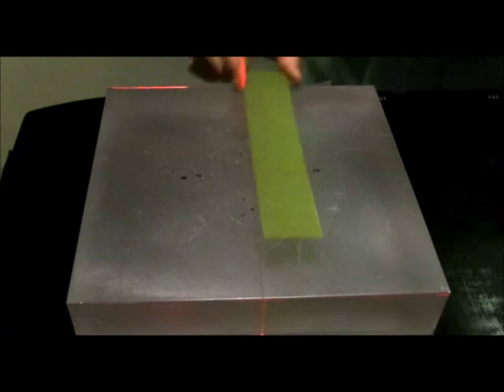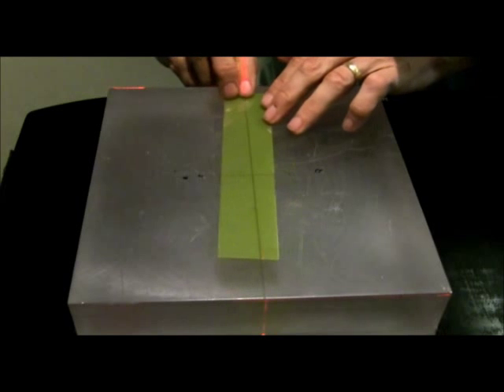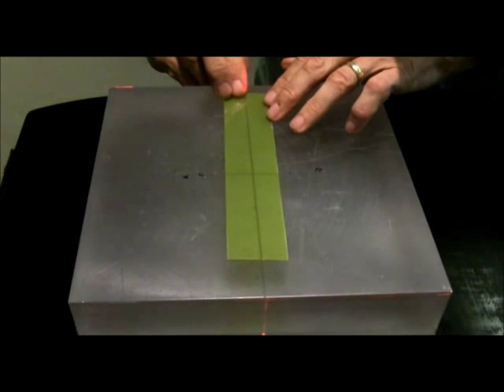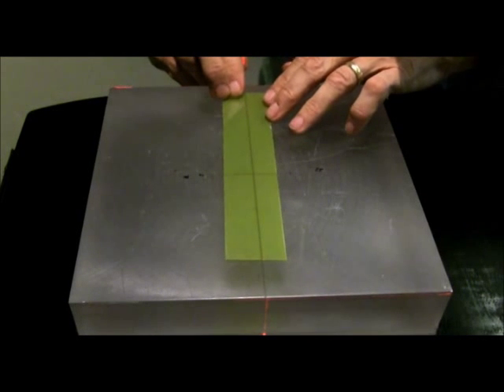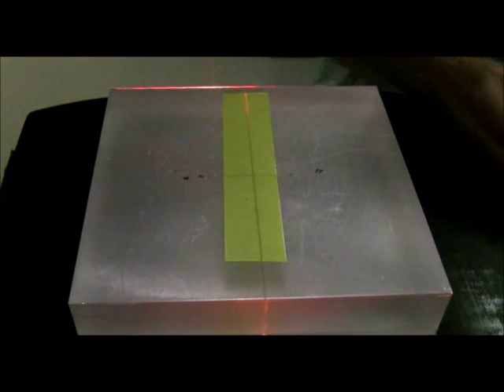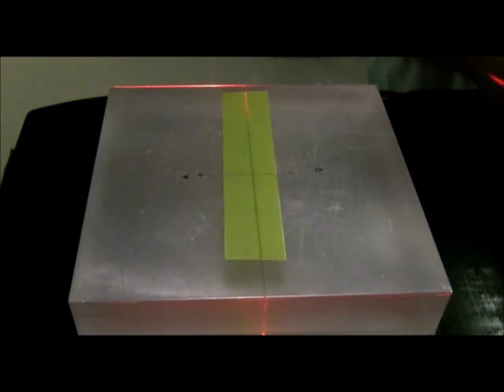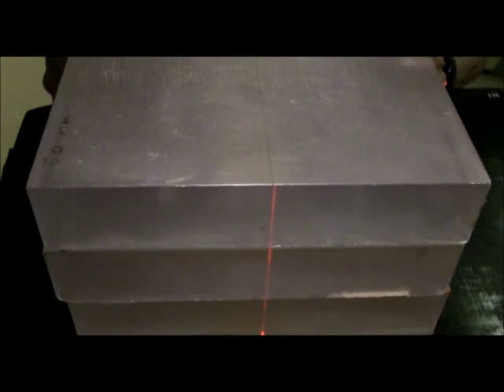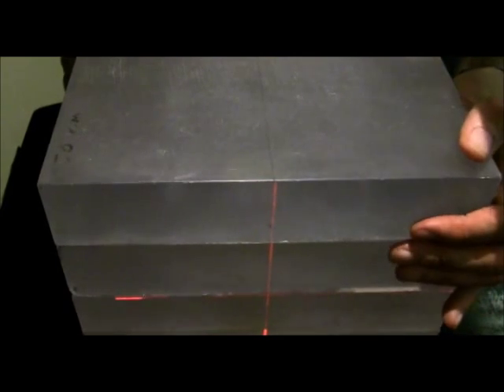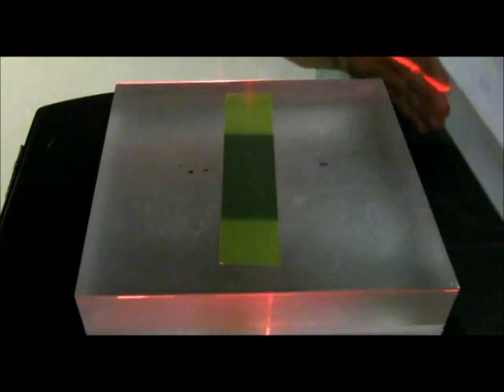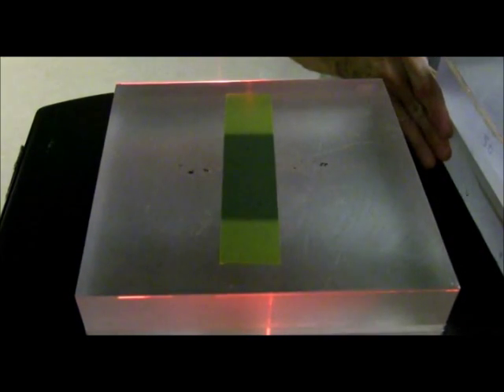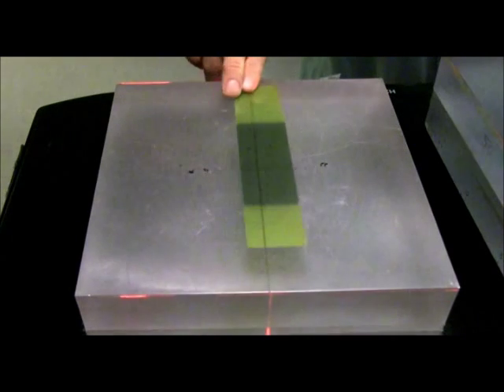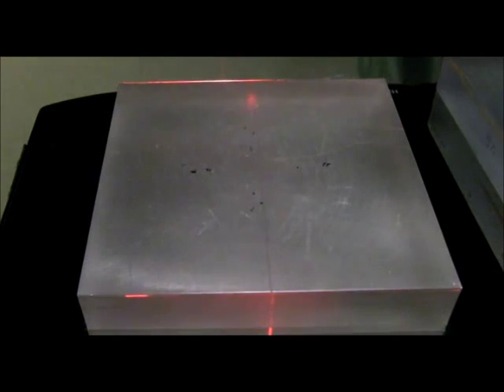Then, after you've exposed the application film, you'll take a reference film and expose it. Ideally about the same as the highest dose on the application film. That way, when you scan the application film and the exposed reference film and an unexposed reference film altogether, you'll use measurements of the reference film to get the best two-point rescaling of the original calibration function and adapt it for that specific scan.